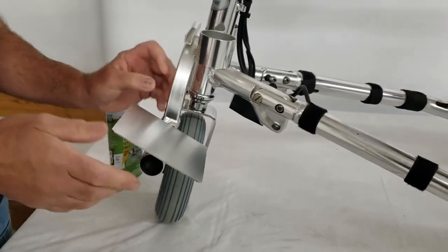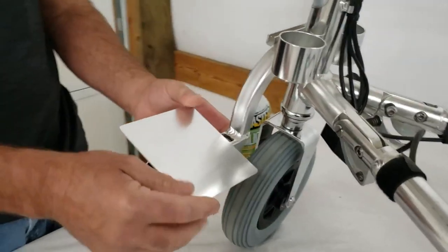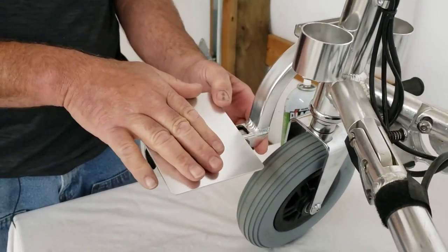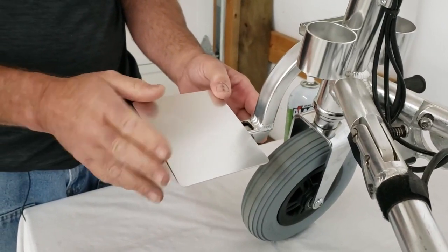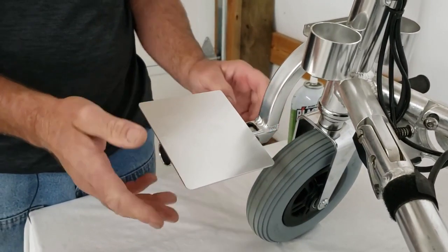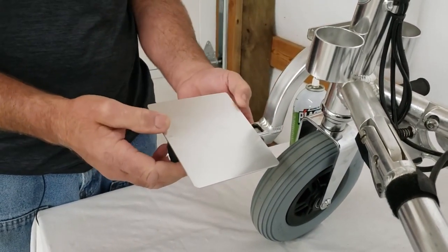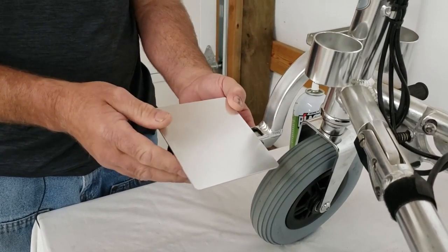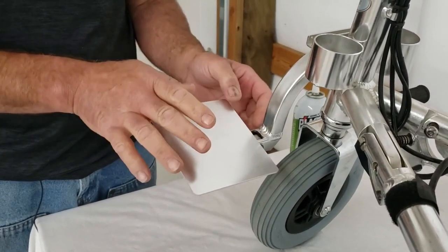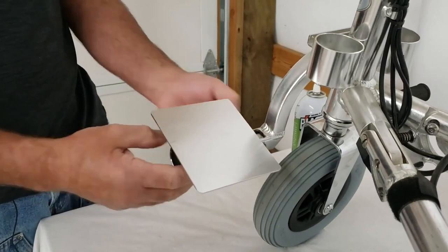If you use Vaseline or something, please not too much. They're meant to rotate a little bit. This is to help spread out your foot pressure if the foot pegs themselves are uncomfortable, or for example, if you have to ride the scooter with your Achilles resting on the footplates.